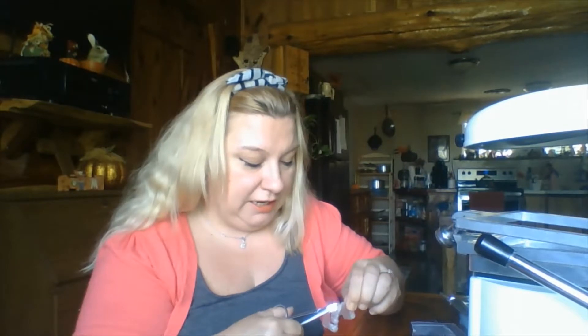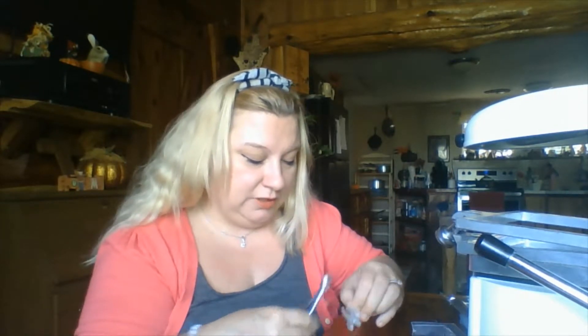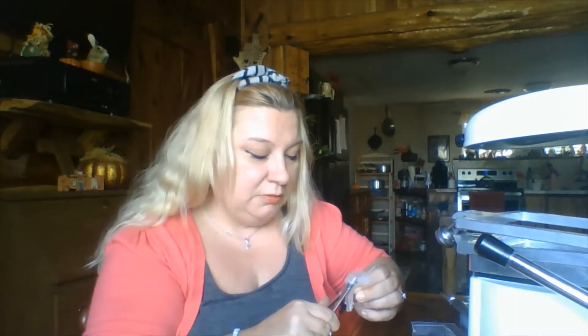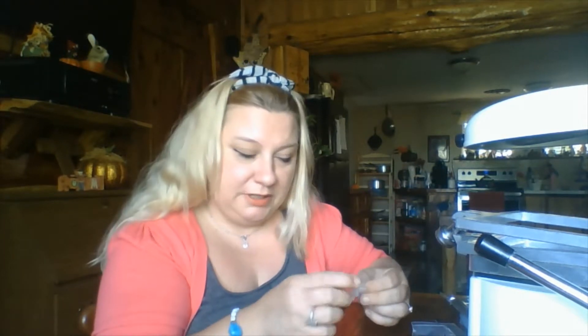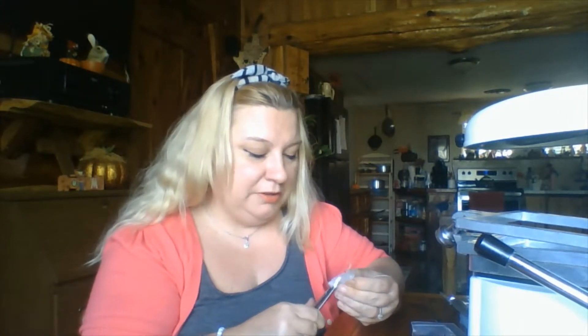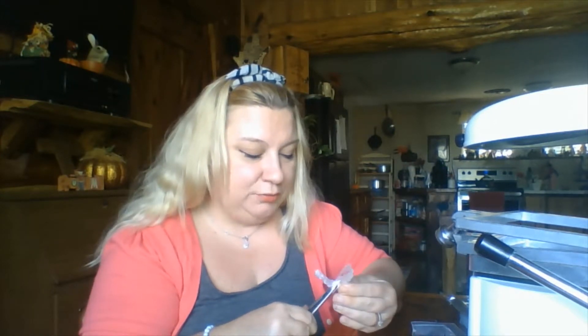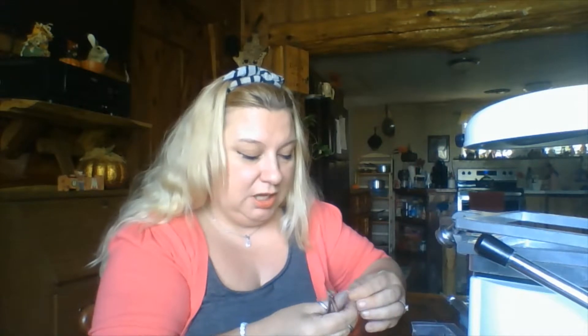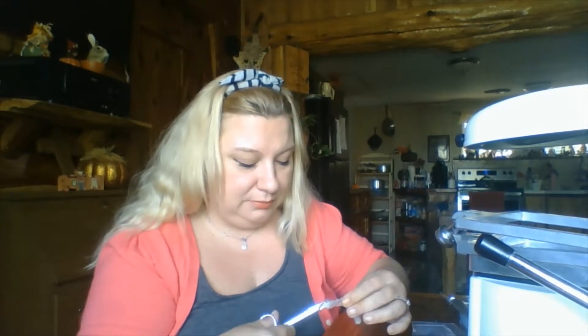But if you do that, you've got to use alcohol to remove the ink spots or cut them off. You don't want to cut too short because if it's a bleaching tray — say teeth eight and nine — you cut eight a little shorter below the gum line, then it's going to show up shorter on the tooth. And when they put the bleaching gel in, it's not going to bleach that part of the tooth. Another rule of thumb is to feel it with your finger once you're done cutting to check for any sharp edges — if there are, just trim them. Always have a name with the lab case. This is considered in-office lab, so I suggest making a lab slip just to remind yourself to get the tray done.